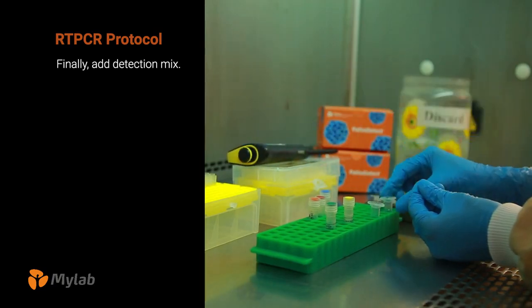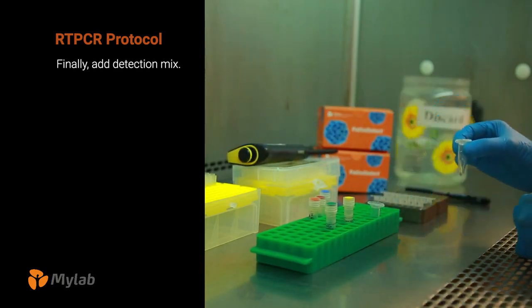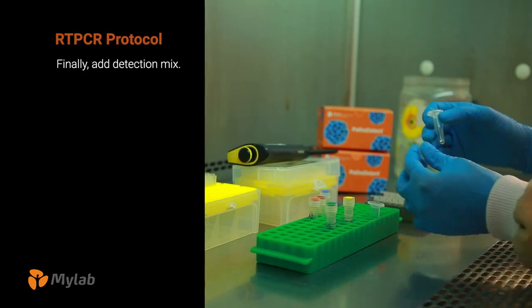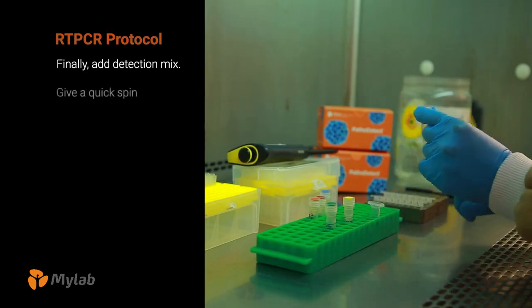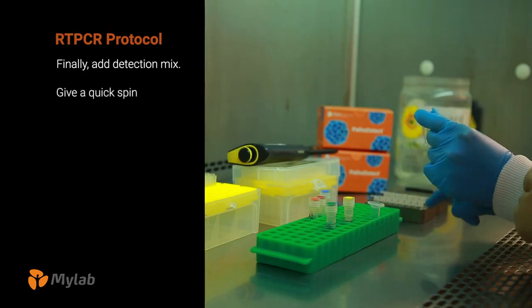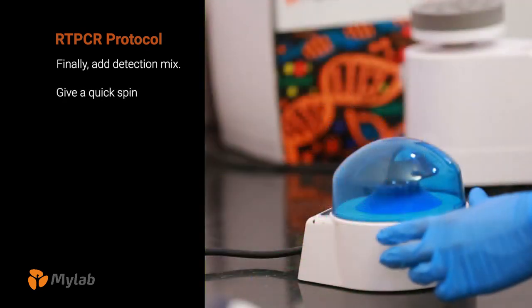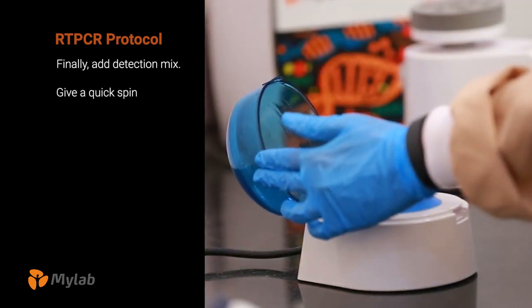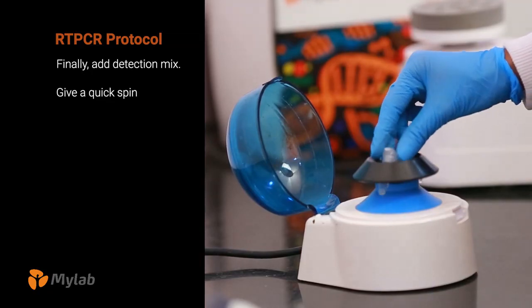Mix the tube and then flick the tube so that all contents are mixed. Give a quick spin.